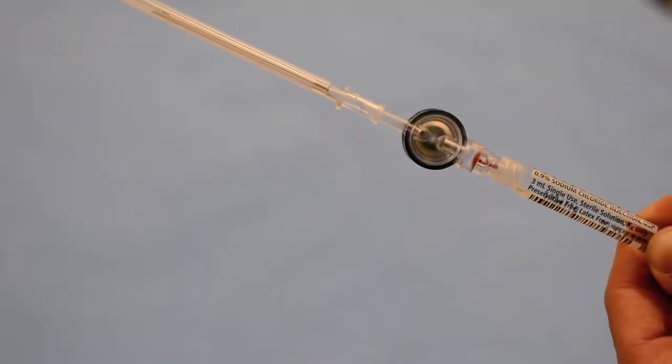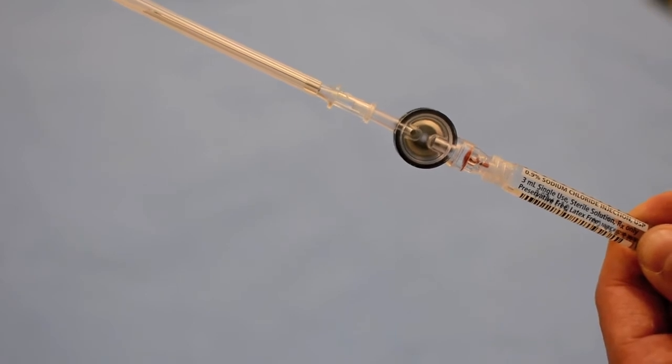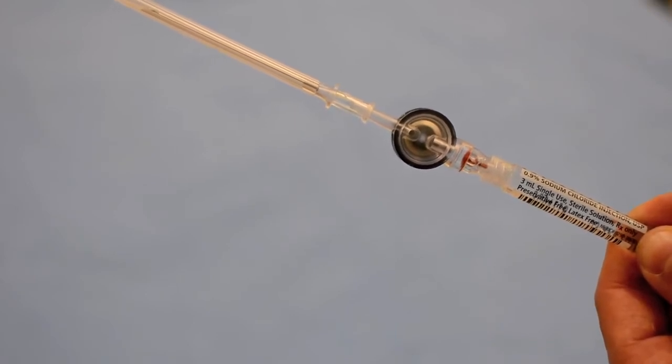Here is a close-up view of the air being purged from the pressure sensing system and the syringe.